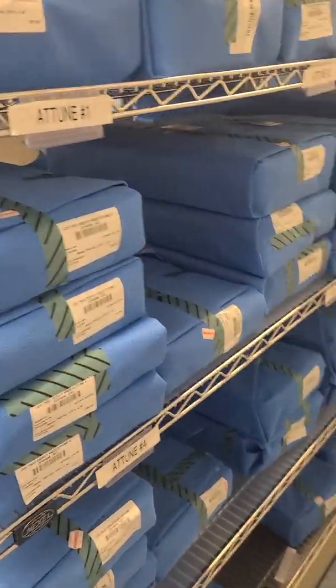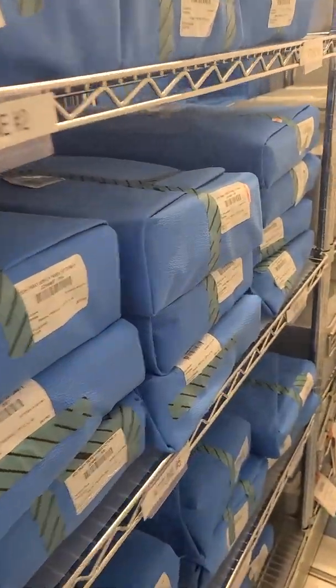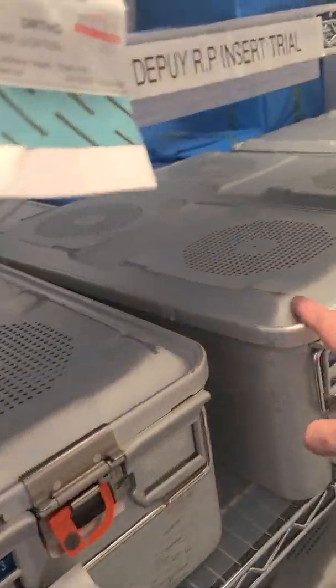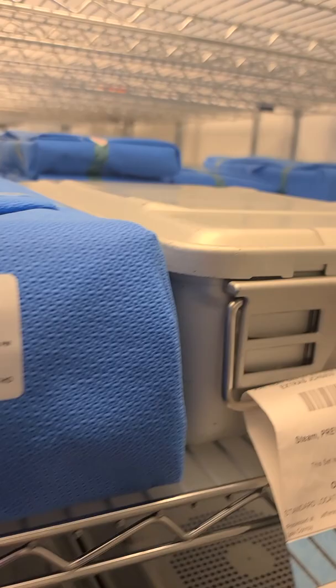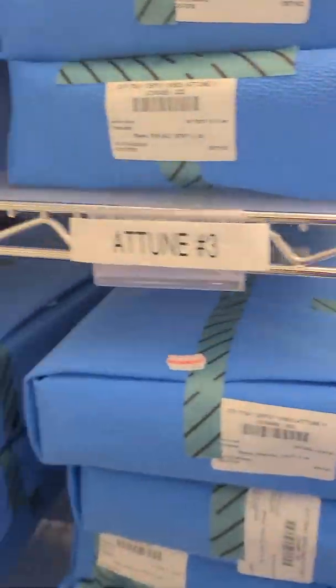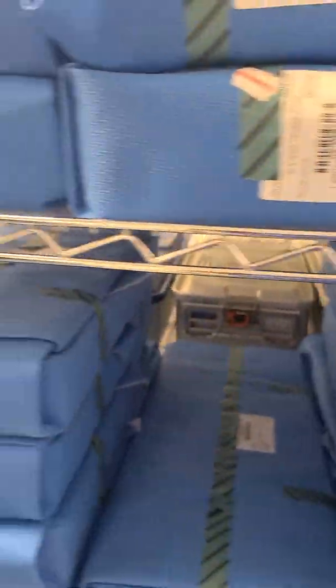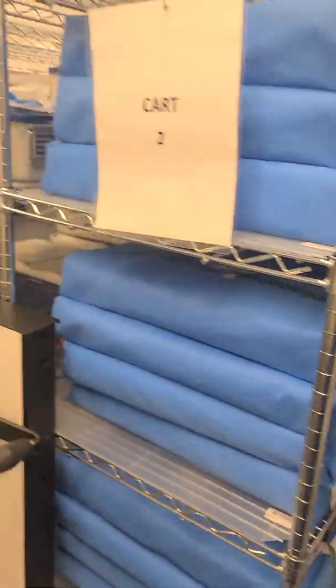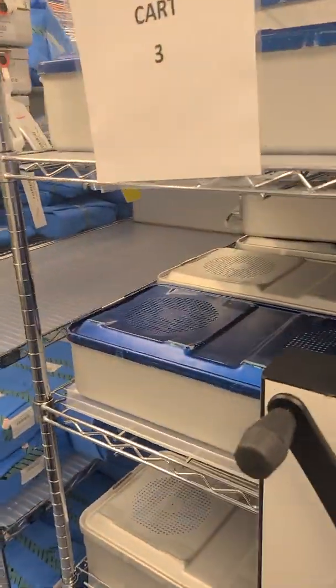You can see that items are stacked, and again it's more about compromising or putting holes in the wrapped items. You can stack rigid containers, but you should not stack a rigid container on top of a wrapped container — that's per guidelines.